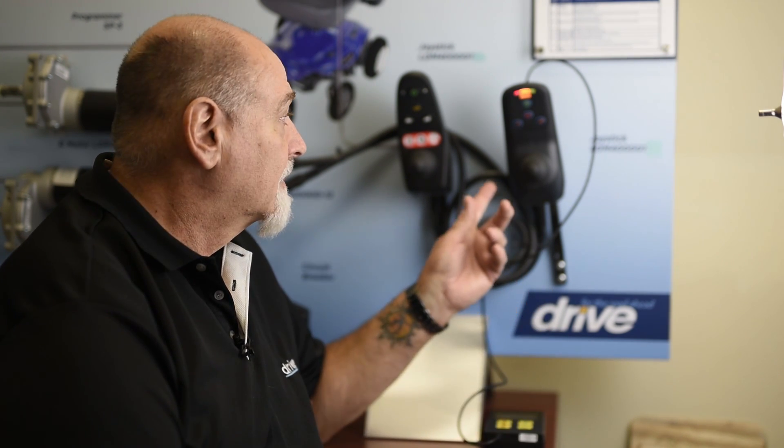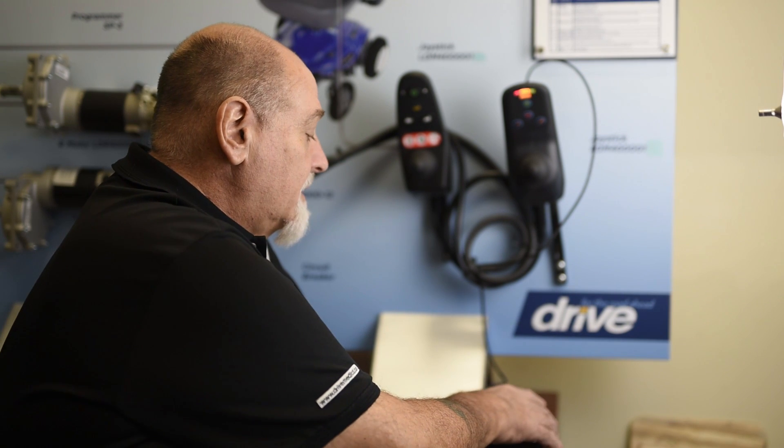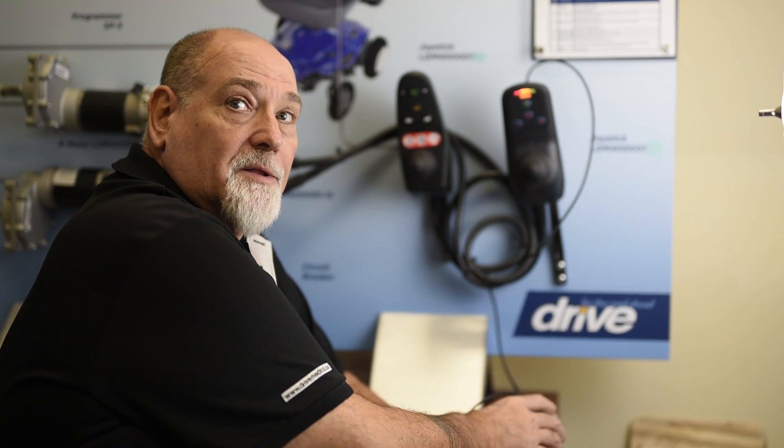Hi, my name is John from DRIVE's Technical Service Department. Today I want to give you some basic programming instruction to help you adapt a power chair to a client's needs. In this case, we'll be adjusting a power chair equipped with a PG controller, and the interface we'll be using is a PG PP1 programmer. Other brands are programmed very similarly to what we're going to be doing today.